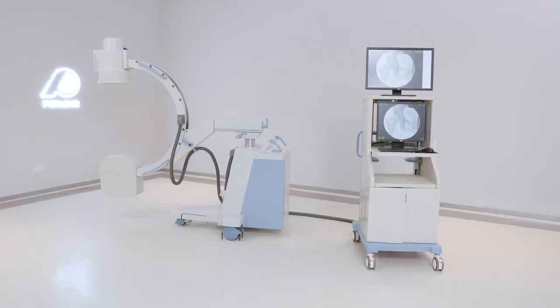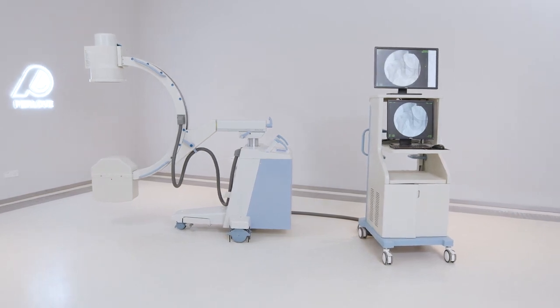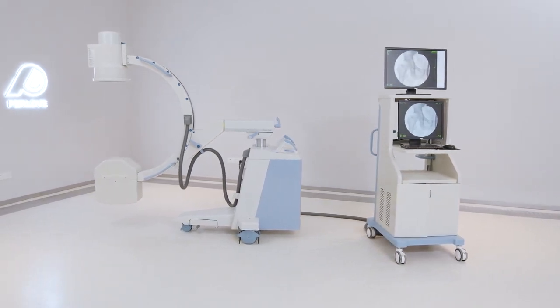With the integrated X-ray tube and generator monoblock design, we can provide the high quality of X-ray.